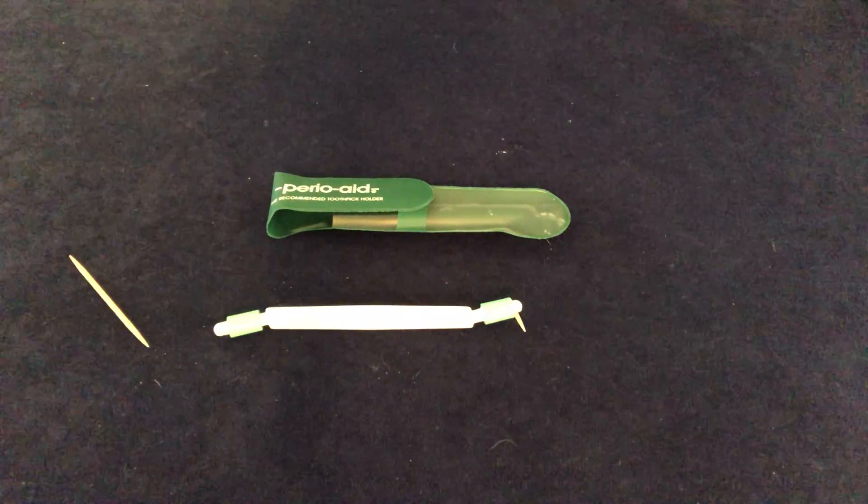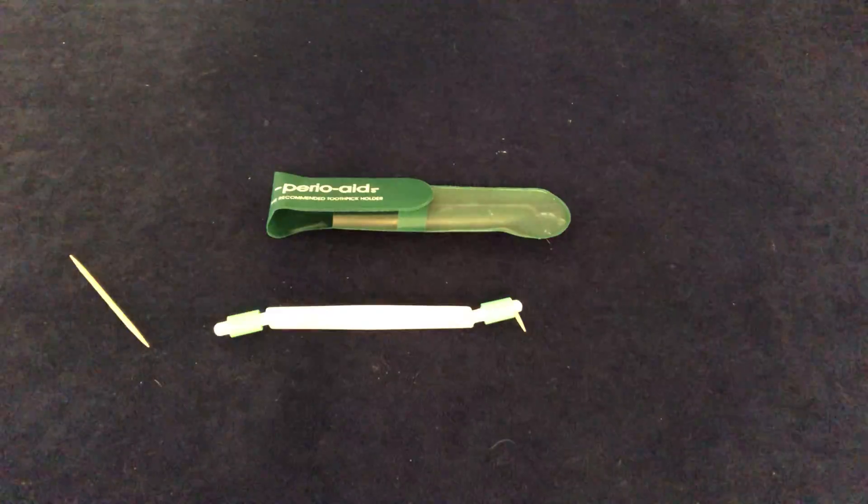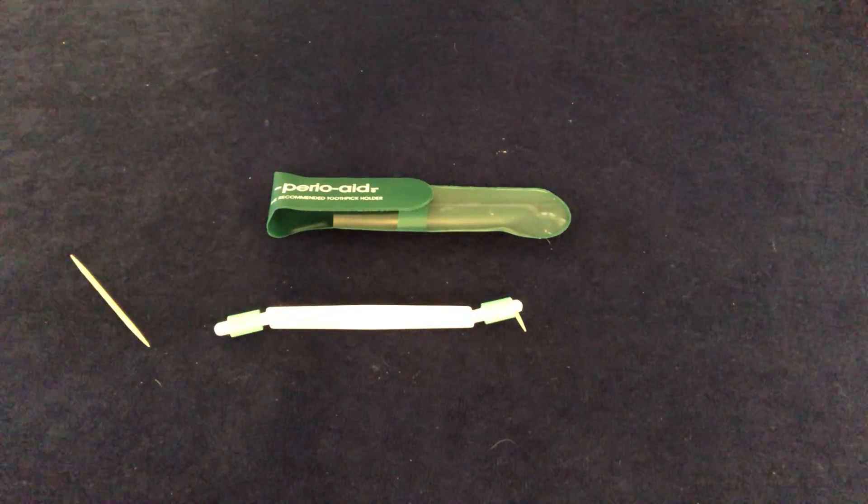Hi, this is Dr. Jennifer Crandall. I'm here to show you my technique for using the PerioAid.